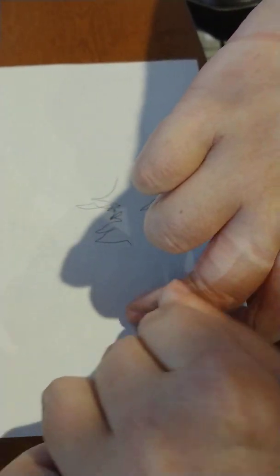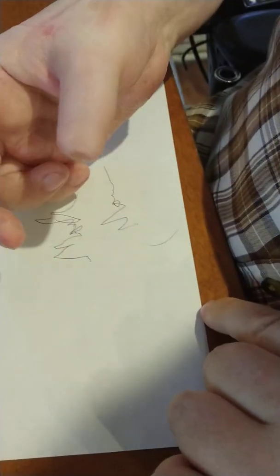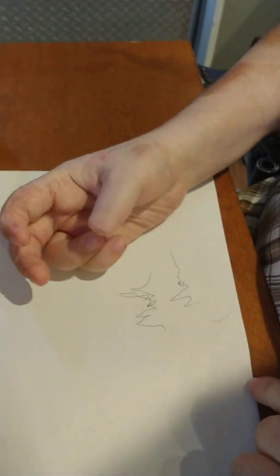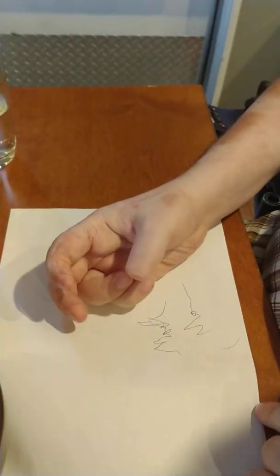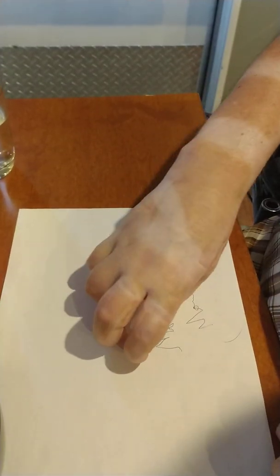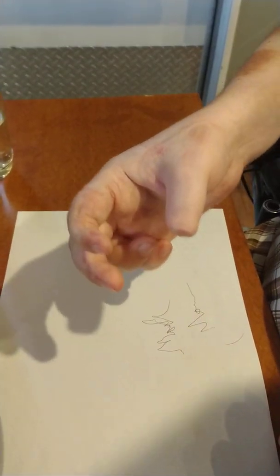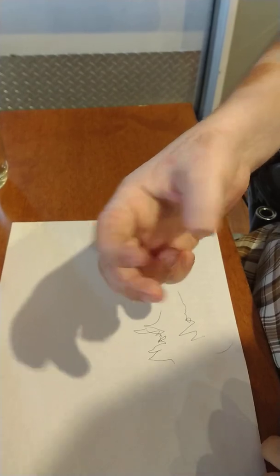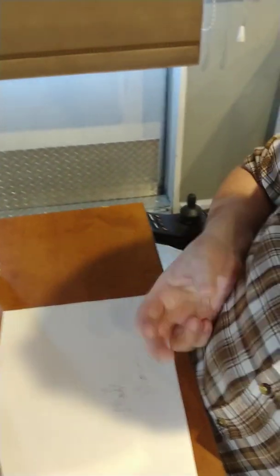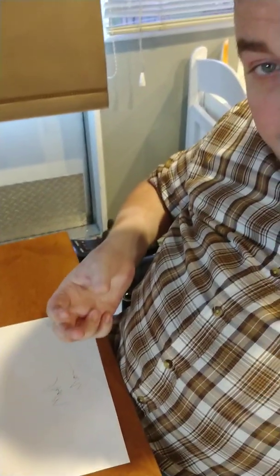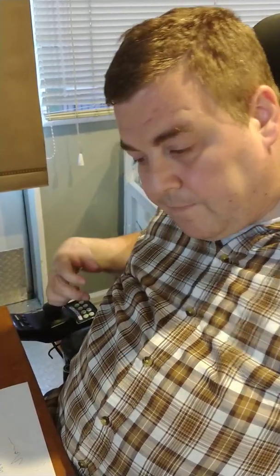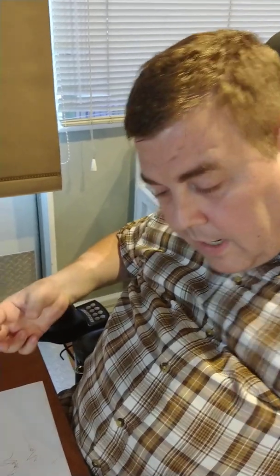I think I really need an extra extra large. This is an extra large and it's just not big enough for my hand. But that's something to be aware of, that you can't see how it's impacting your hands. You really need to observe that. After half an hour, take it off, try it again after two hours. But that's the same with the power grip when it's new. With the power grip you can see your hand a little more, but you still need to be observant of that. So let's go ahead and get the power grip put on and we'll try that.